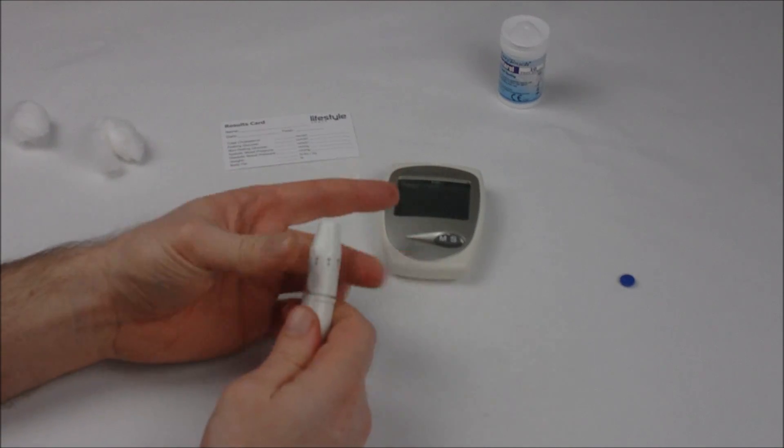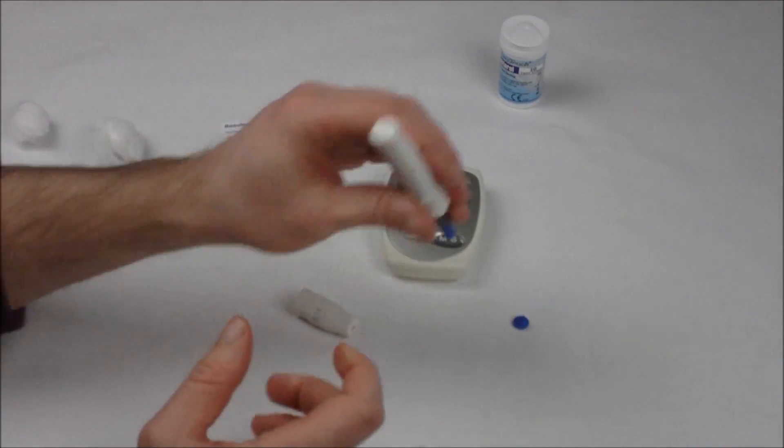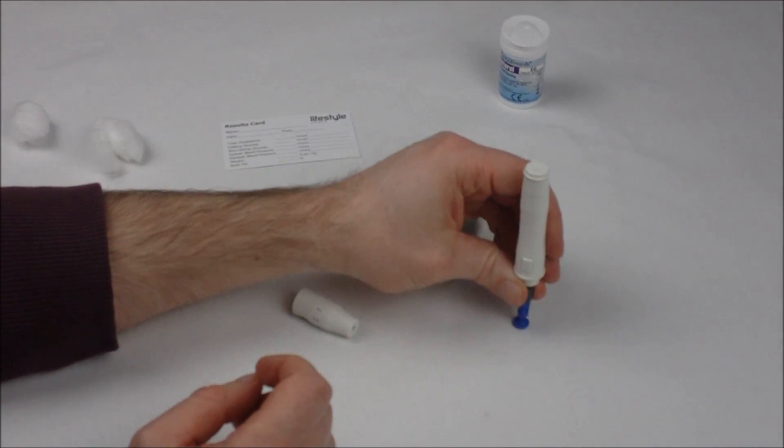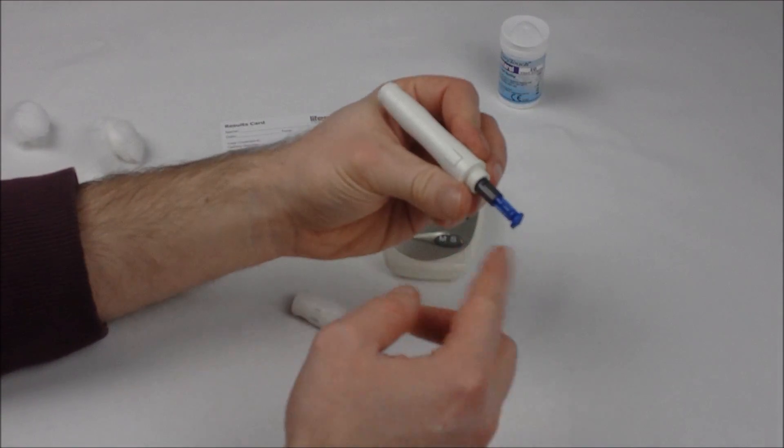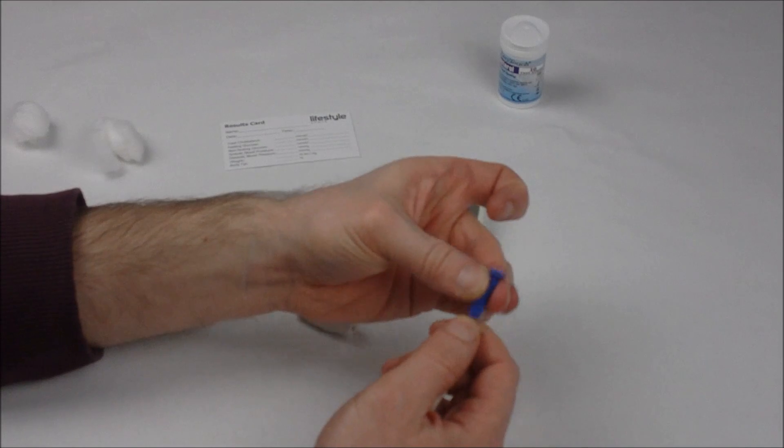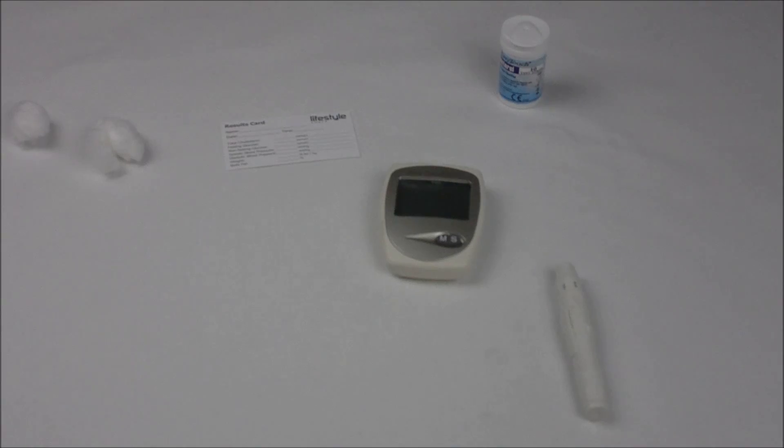When you are discarding your lancet, it's best to use the cap to just push down onto the needle. That ensures that the needle doesn't cause you any injury when you take it out, and that can be discarded. That's our cholesterol measured and the end of this video.